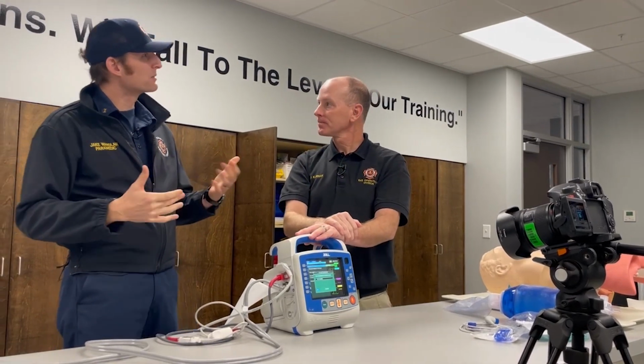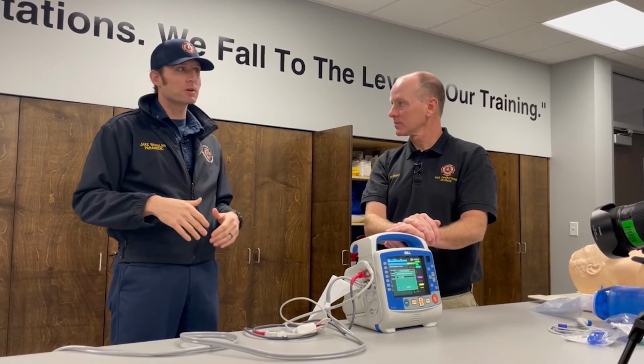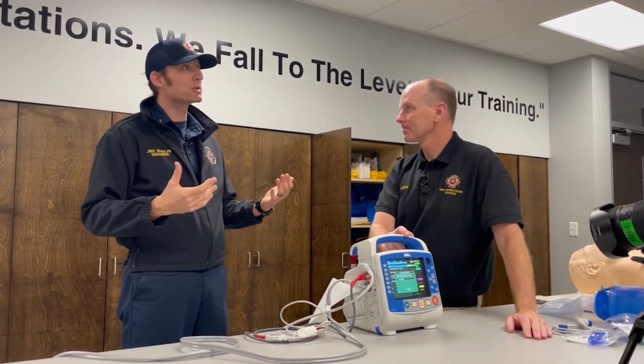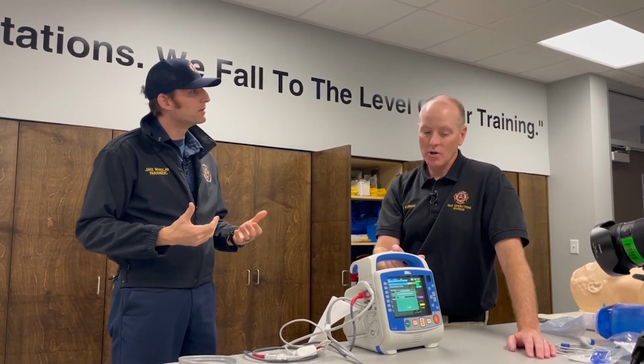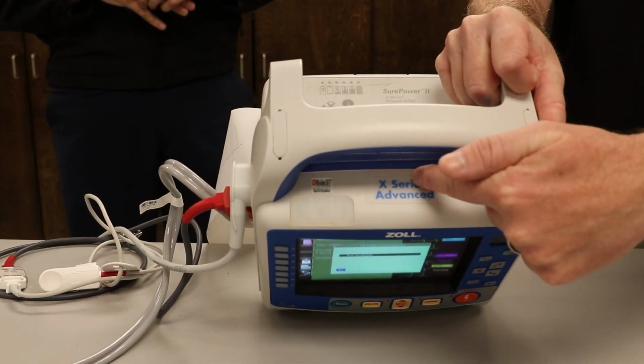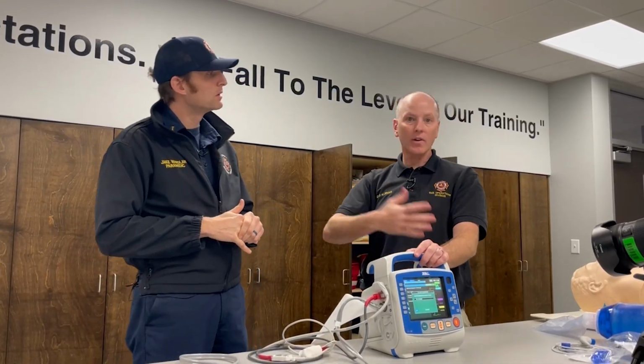So worst case scenario. Let's say technology fails, or even human error. You know, we all have to raise our hands sometimes and say, "Oopsie, we made mistakes." Right? Correct. We can't get this thing to transmit. Not at all. What do we do now? So at the top, we're going to have a phone number for Kennestone Hospital. You will actually pick up that phone, Kennestone Hospital. You'll say, hey, I am Engine 6. I am unable to transmit.